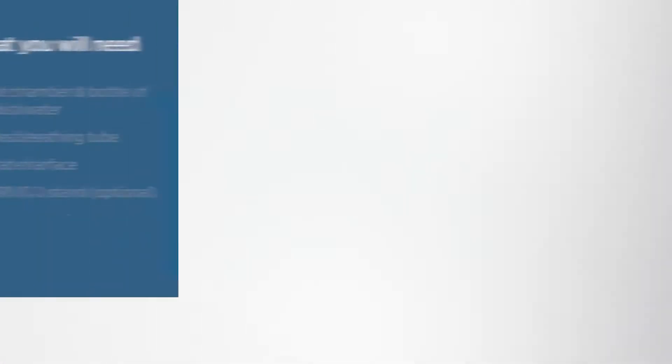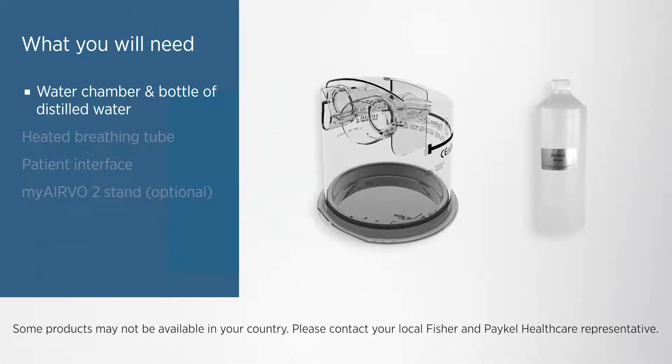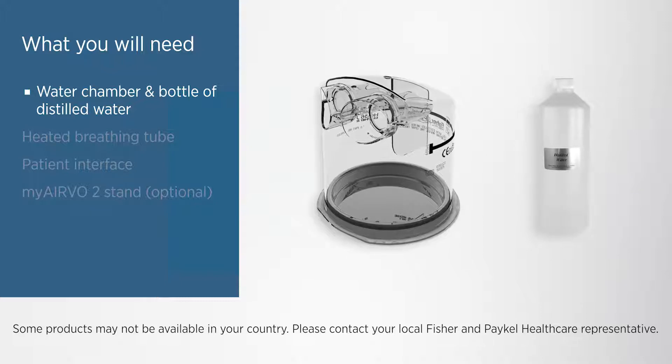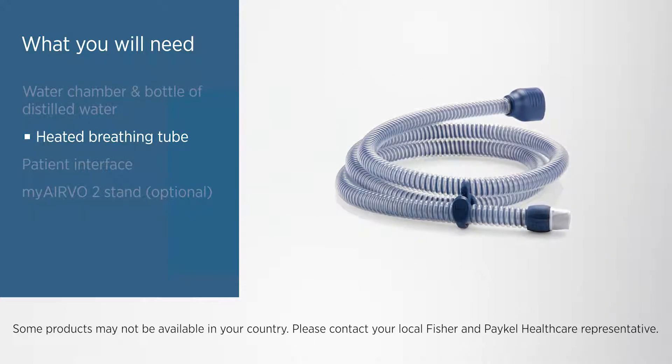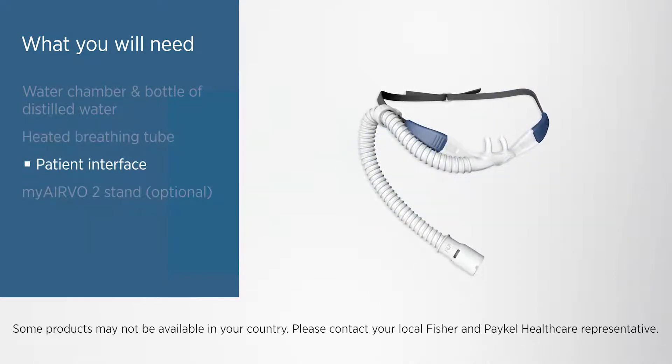These include a water chamber and a bottle of distilled water, a heated breathing tube, and a patient interface.